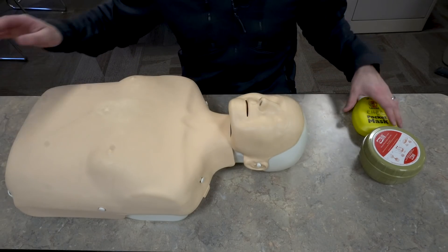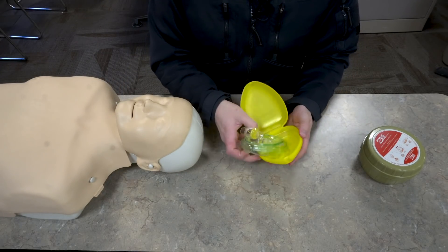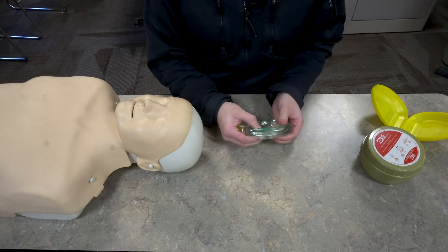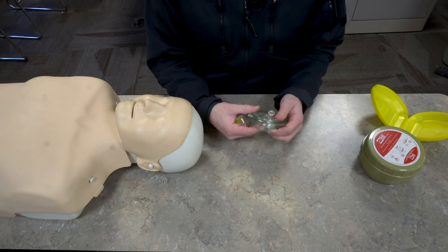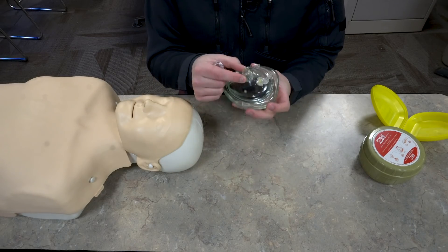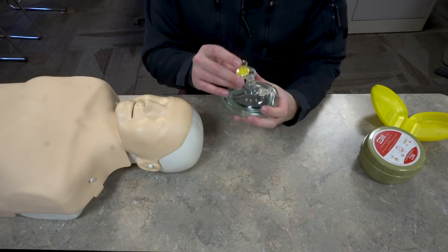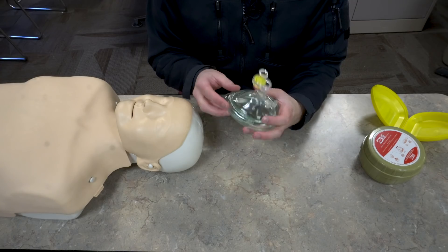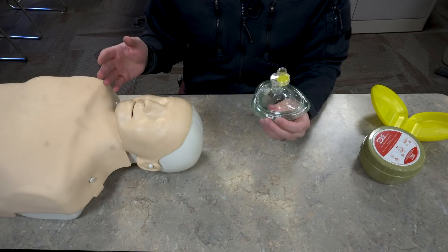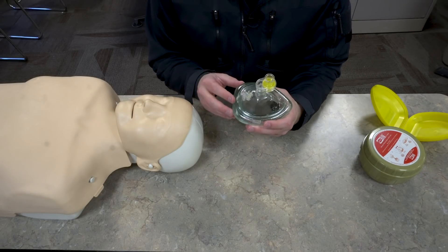For those cases I prefer using a pocket mask. A pocket mask is a device that's a little bit more substantial and allows you to get complete separation and not actually come in contact with the patient while providing rescue breaths. There are a lot of different brands out there, but what I would make sure you have is the standard size tip that can be attached to a bag valve mask, a one-way valve to prevent anything from coming back up at you, and the mask itself should be clear so you can visualize the airway and see if there's vomit or blood that you need to clear. This one also has an O2 port, which is a nice feature but not necessary for most people.